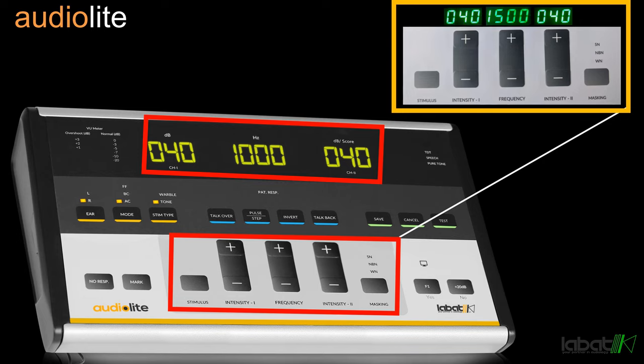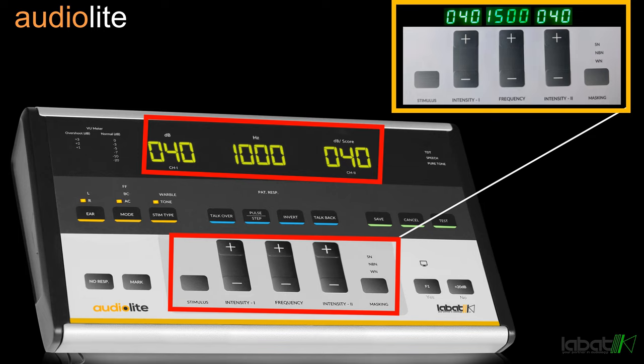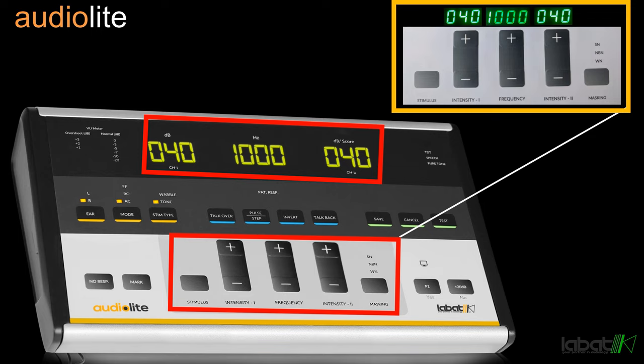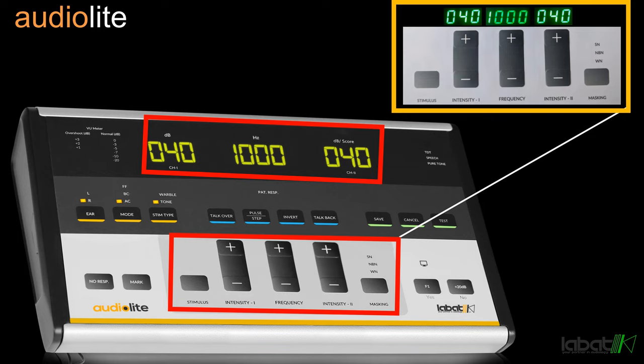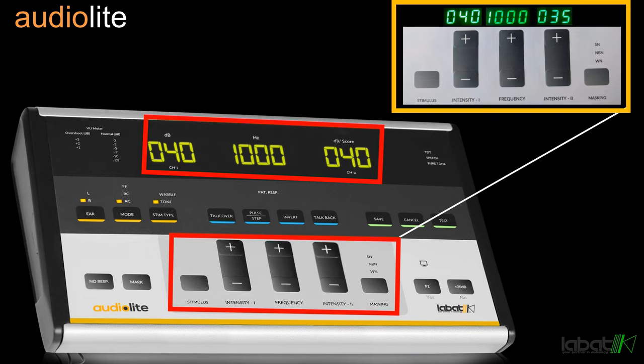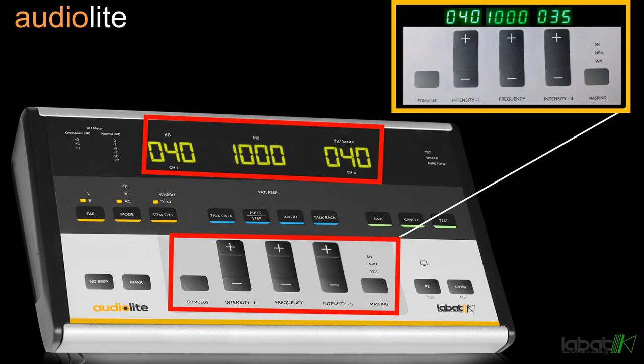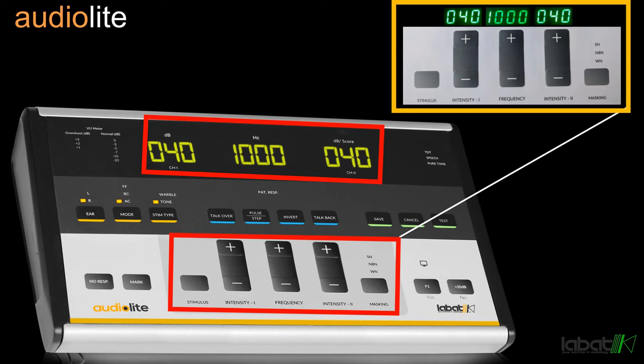Frequency is used to increase or decrease the frequency at a particular intensity, and also to increase or decrease the frequency of masking in narrow band noise up to 8000. Intensity 2 is used to increase and decrease the intensity of masking in channel 2. Touch and hold the masking button.